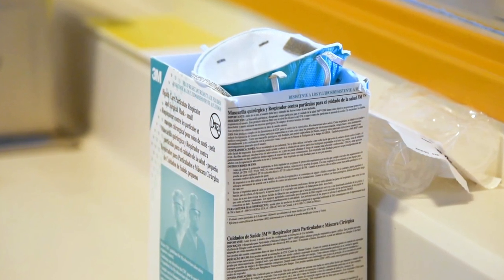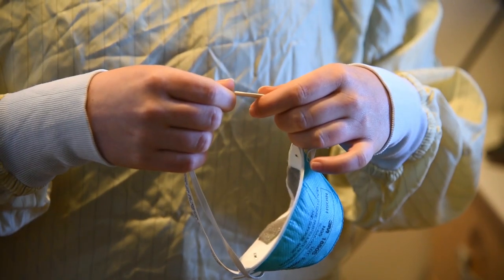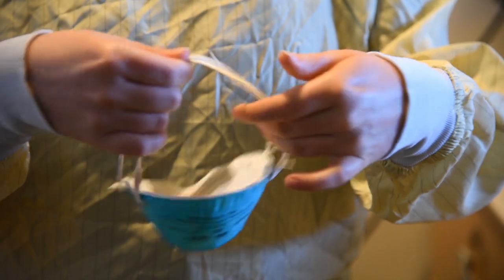There are different styles of N95 respirators, but all styles have the same basic steps for donning. Refer to the manufacturer for specific donning instructions. Check the elasticity of both the top and bottom straps before placing the respirator on your face.